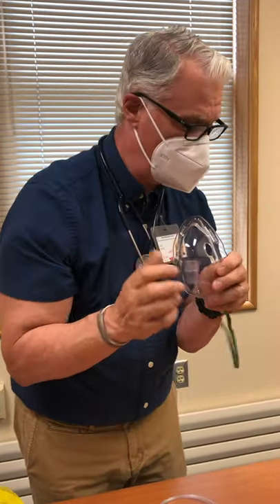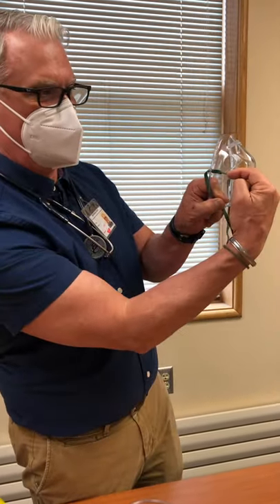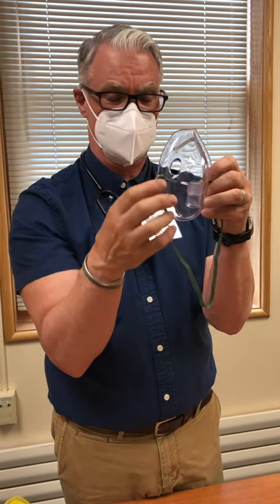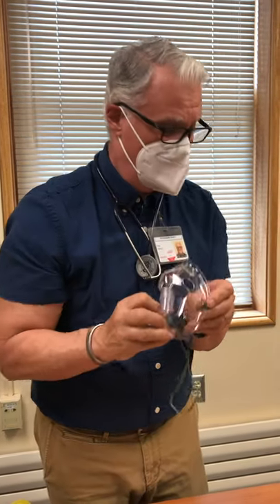Here at Rockingham, we're going to switch to an aerosol mask from the same manufacturer that makes the OxyMask. Their version brings the flow in at a right angle and puts it right in front of the patient's mouth where they'll breathe it. There are also two exhalation holes on this mask — on the OxyMask version, the hole is right down here, so when they exhale it gets forced downward instead of being forced up into the eyes.